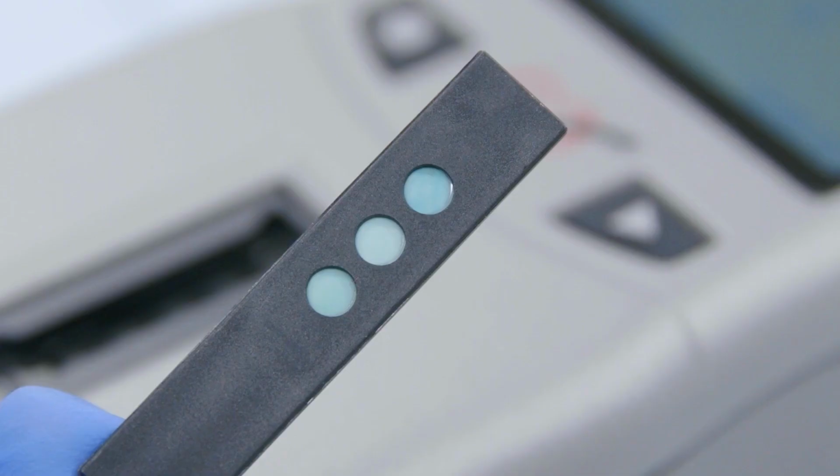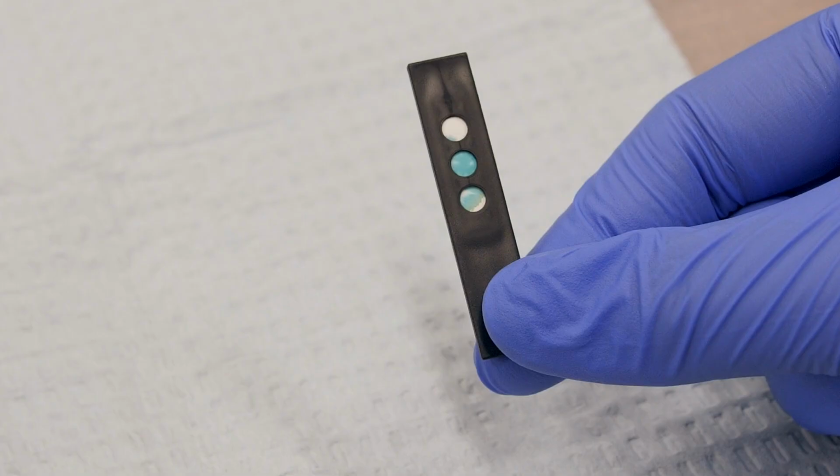If your results are not within range, check the back of the lipid panel test strip to make sure that the 3 circles are completely colored. If they are not completely colored, you might not have applied enough control solution. See the Quality Control Testing section in the CardioChek Plus version 1.12 user guide for more troubleshooting tips.